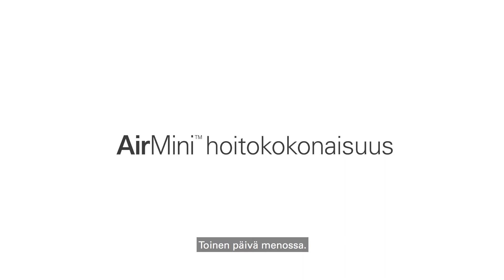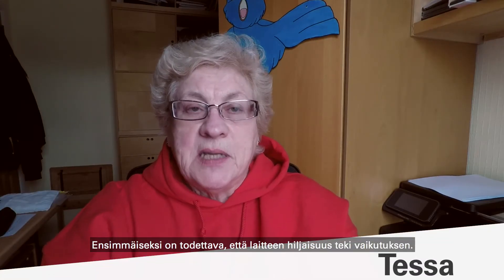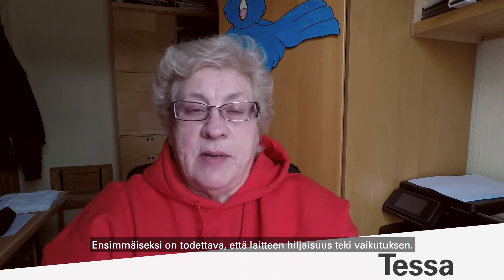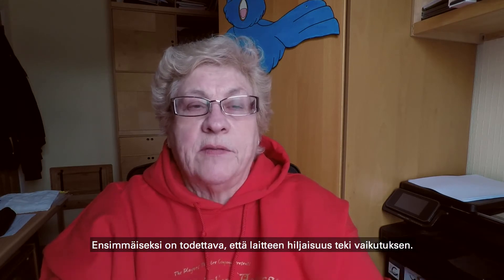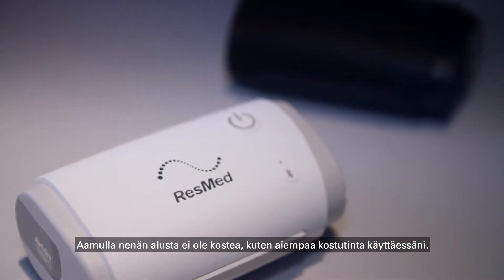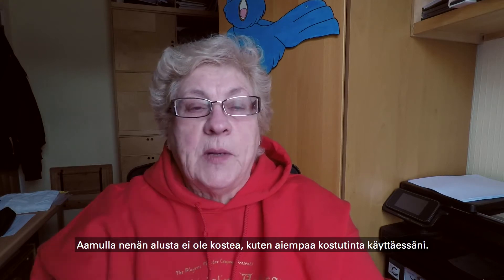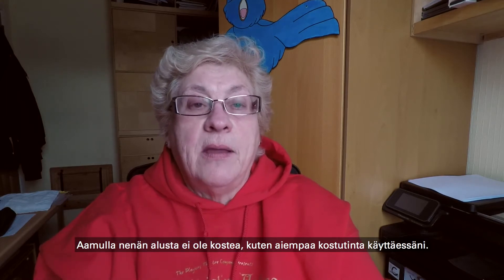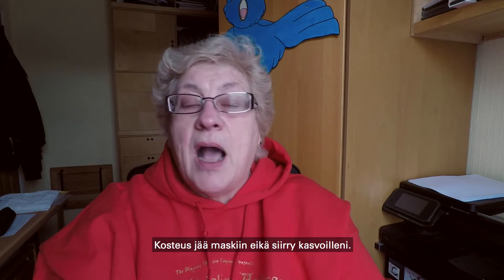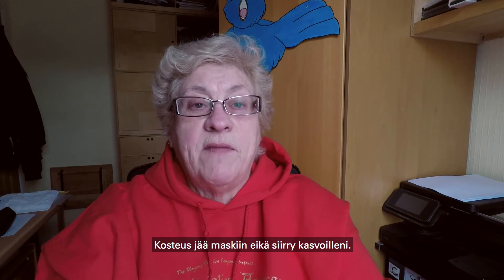So, it's day two. I thought I'd give it a couple of days before I made any sort of report. The first thing I would have to say is that I am very impressed about the quietness of it. My husband says it's even quieter than the last one, and that's fairly quiet. When I wake up in the morning, instead of having moisture around my nose — just below my nose, which happens with the other humidifier — I don't have any of that. The moisture is retained within the mask and it doesn't go on my face.